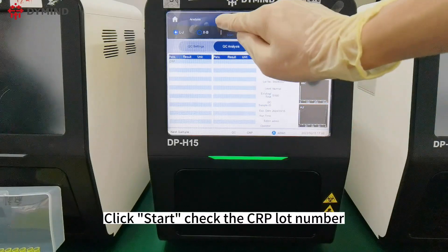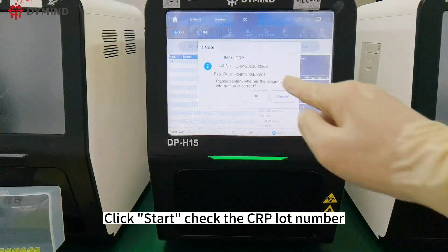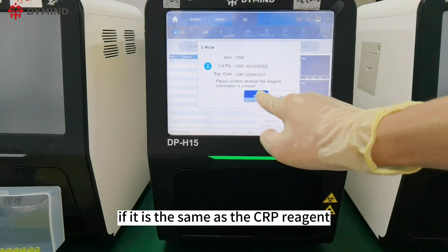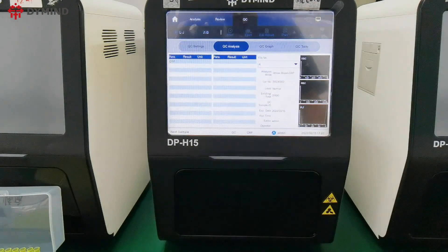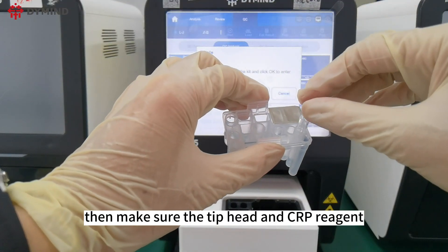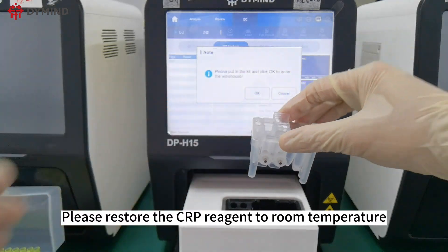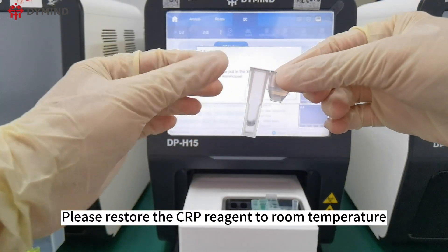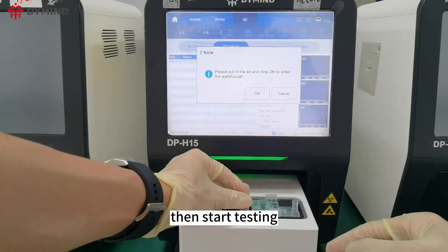Click Start and check the CRP lot number to confirm it matches the CRP reagent. Ensure the tip head and CRP reagent are in place, restore the CRP reagent to room temperature, and then begin testing.